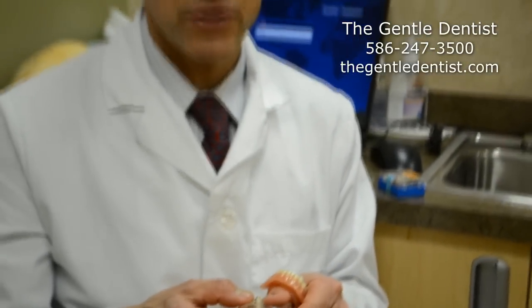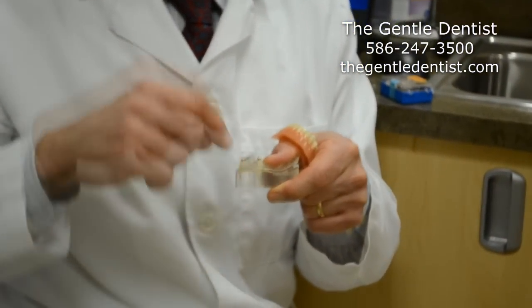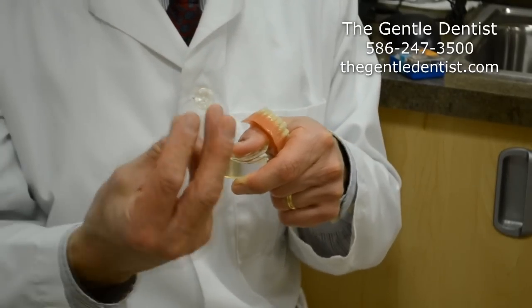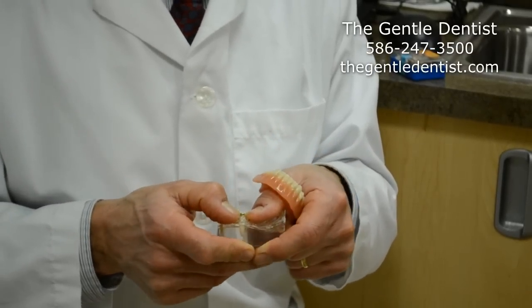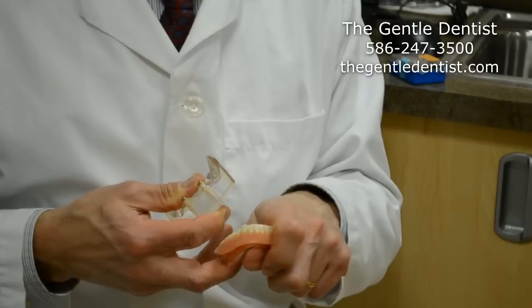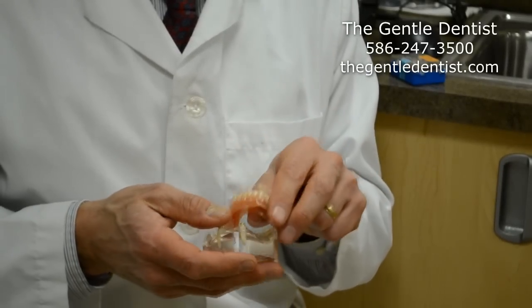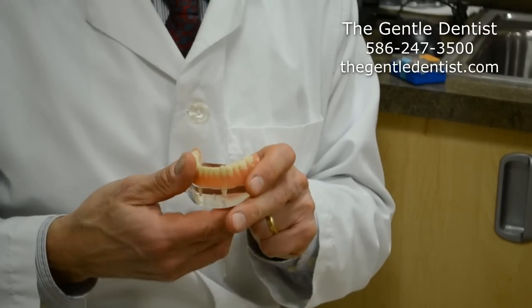Starting with natural teeth — the natural teeth are in bone like this, and we can use an attachment to actually go inside of the root of the tooth. The tooth has a root canal in it, so the tooth is dead itself, but it's contained within the jawbone. We place an attachment — this very small little brass device — used as a little clip, and it will hold the denture in place. Inside it, there's the female portion, where this is the male, and the actual clip goes over the top of it, and they'll be nice and stable for a denture to not move around.